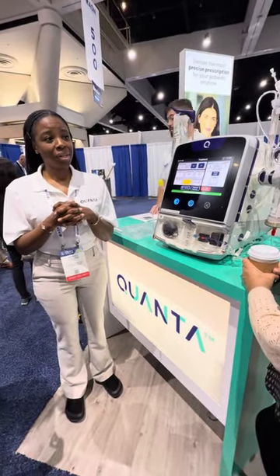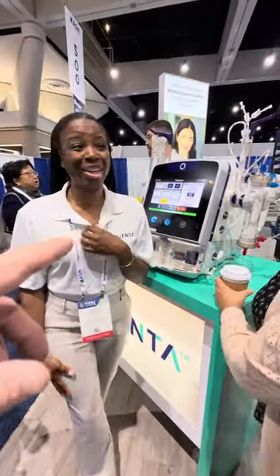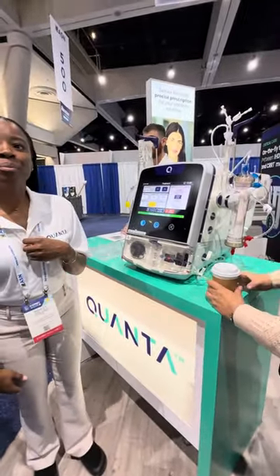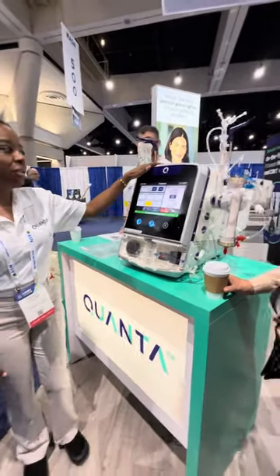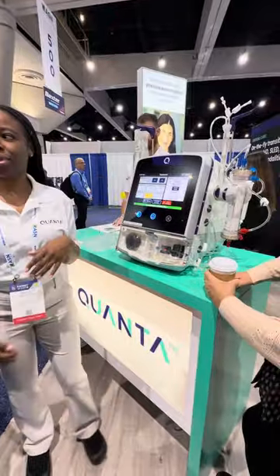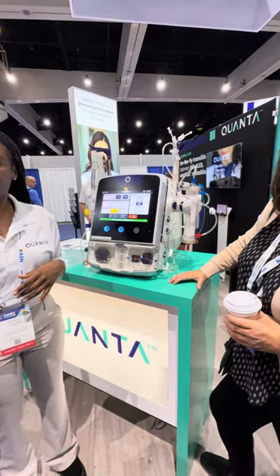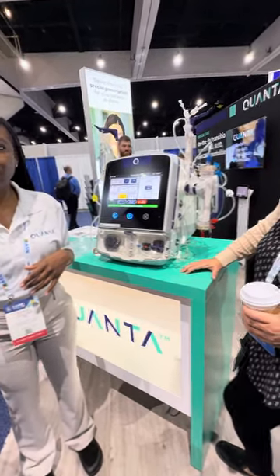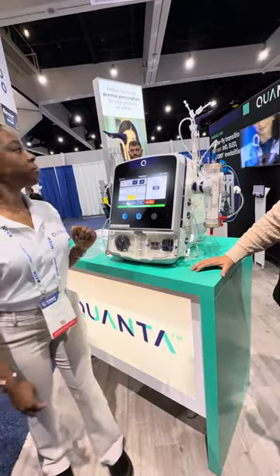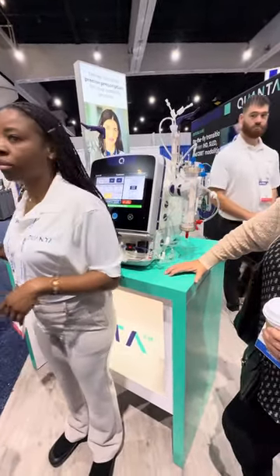How heavy is it? I am loving how it's separate on the RO. This is 70 pounds. That's not bad. Michael and Christina are home dialysis patients — they travel. My wife is legally blind, and I administer dialysis. We do nocturnal HHD. They travel all over the place and do all their dialysis and document their stuff out in the world.